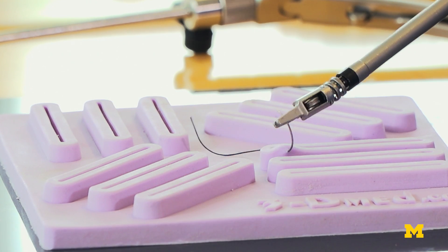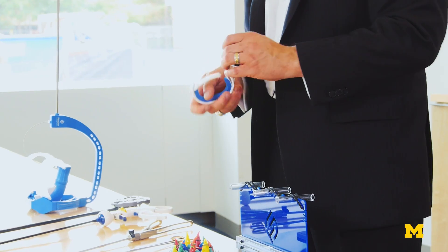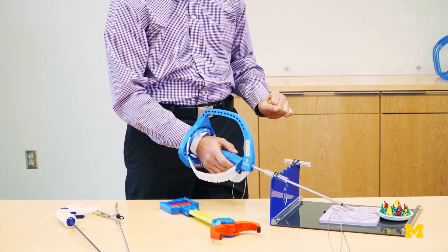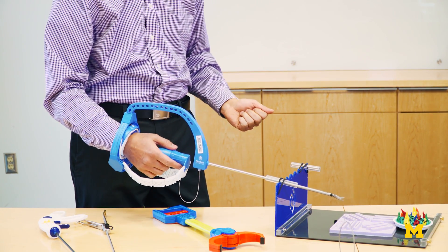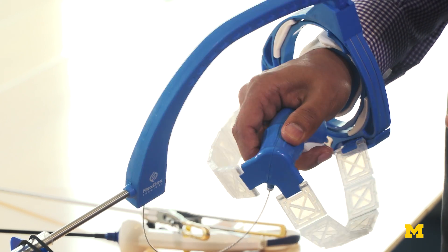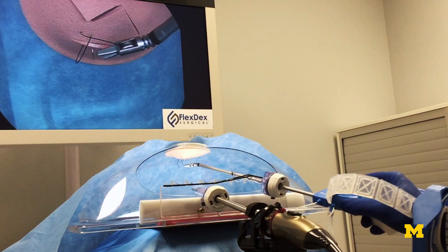In addition, there's yet another innovation in this device, which is how the frame is mounted to the forearm. This is a rather unique configuration that doesn't exist in any other instrument. By connecting this via a gimbal, we increase the reach of the end effector inside the patient's body in a manner that remains comfortable and ergonomic for the surgeon. Yet another capability of this device is the ability to rotate or roll infinitely, which is very important functionality when it comes to sewing.